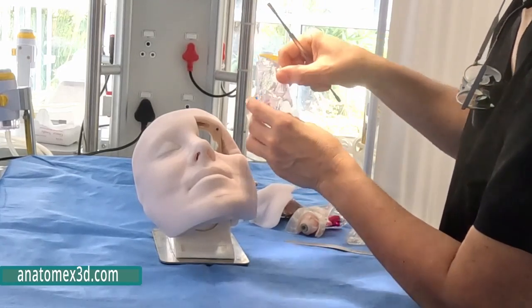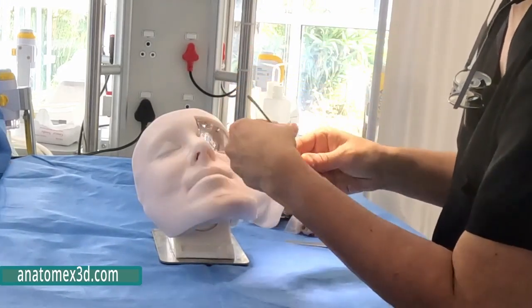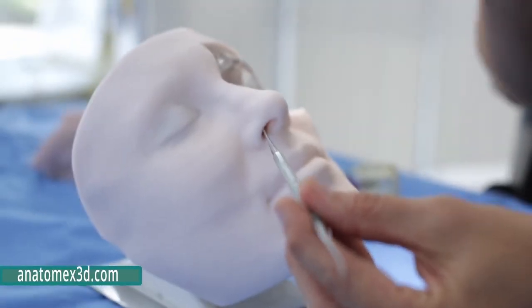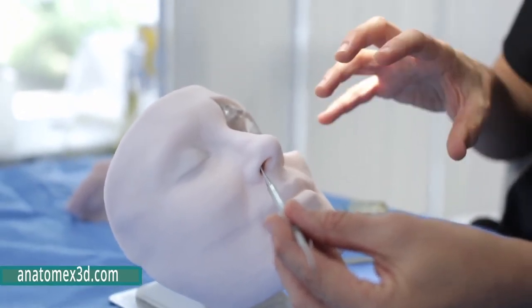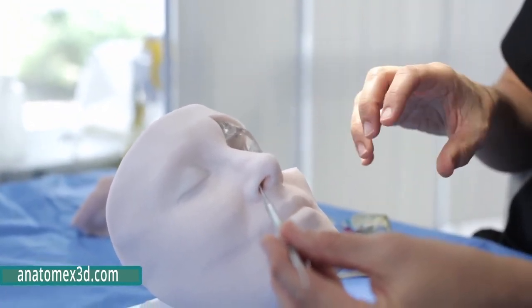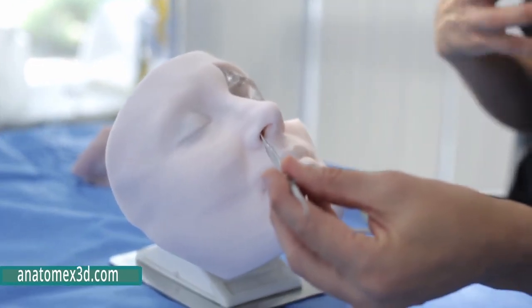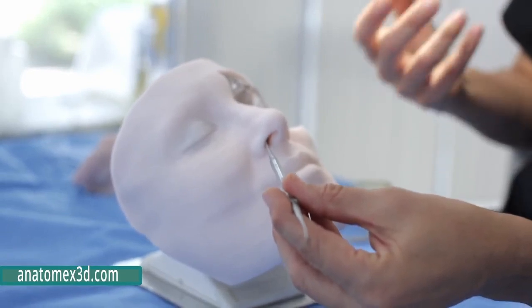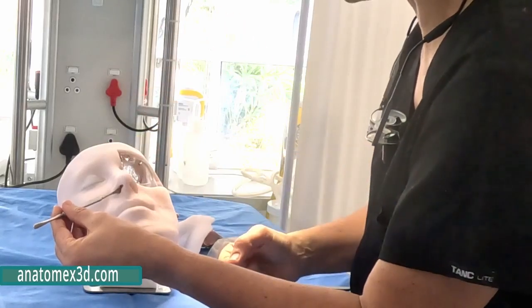So in this patient, where we would normally use a transnasal method, often from the opposite nose to get to that area, it's very destructive for the nasal cavity. You have to do a posterior septectomy, enter the sinuses. Often those patients have a palatal numbness because you damage the Vidian nerve. And also you damage the sphenopalatine artery, and you have to use a contralateral flap.